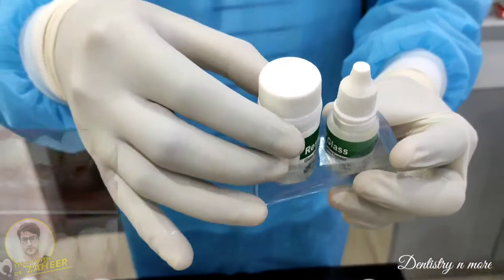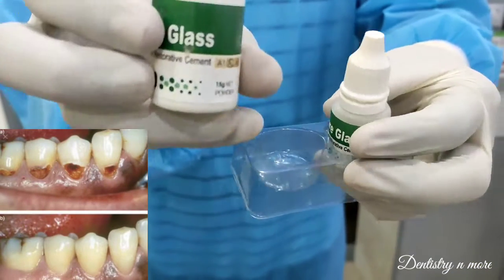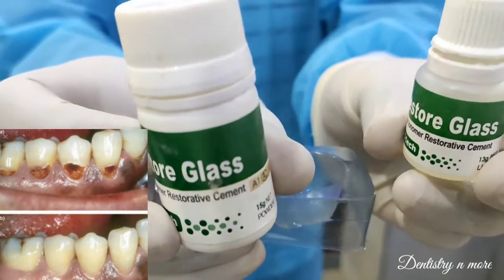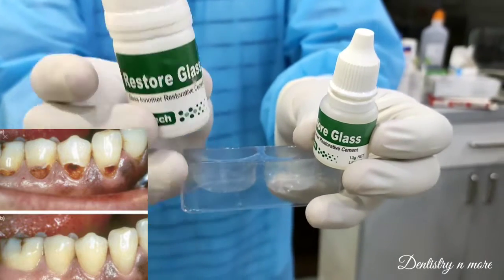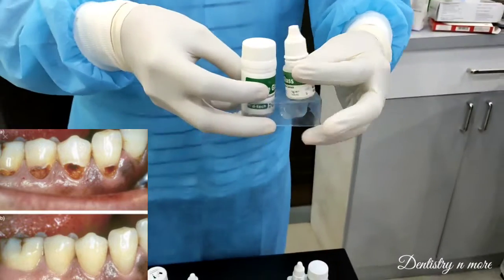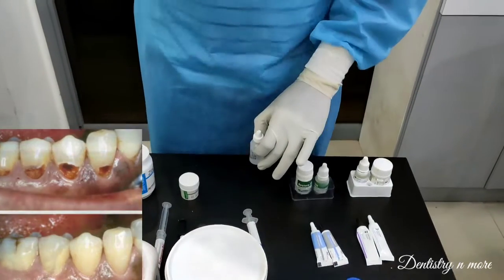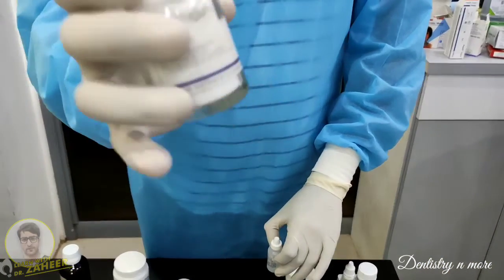Next we have another type of glass ionomer cement — Restore Glass. It has various shades; we can select the shade depending upon the tooth we are going to restore. It is basically used in non-stress-bearing areas such as the cervical areas, mainly for cervical abrasion cases.